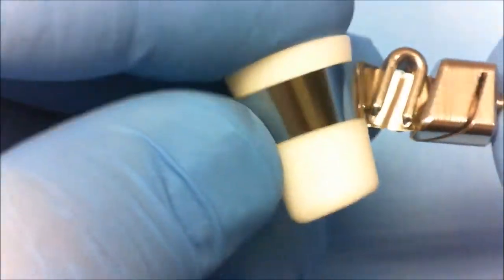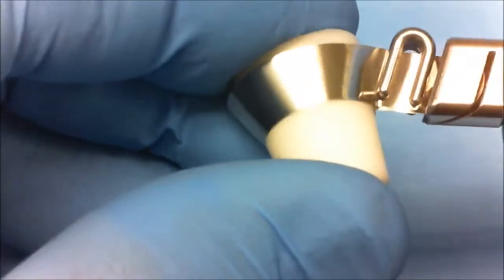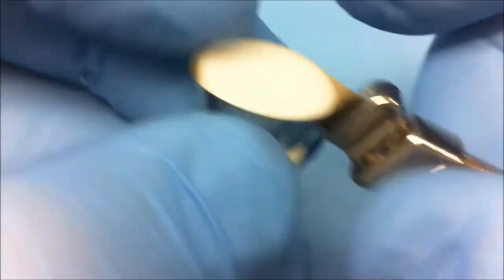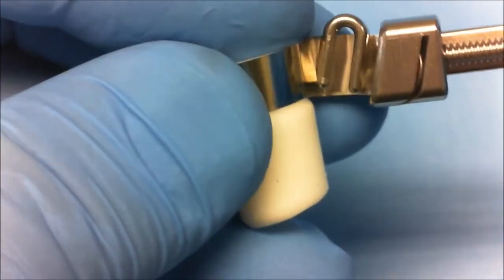Simply drop the bottom of the tool into the band loop. Slide the band up past the indented area and tighten. You are ready to go.